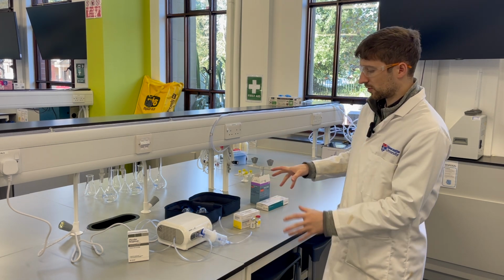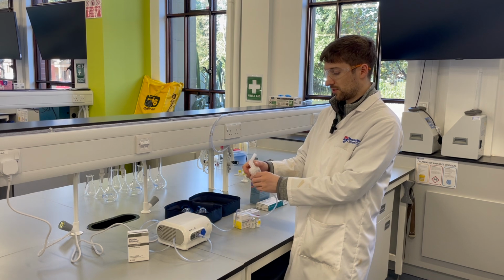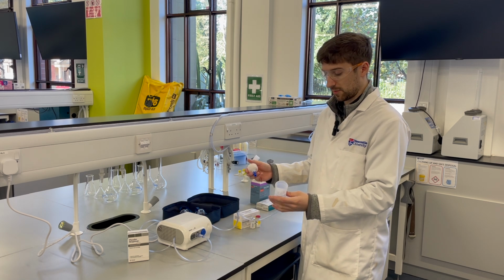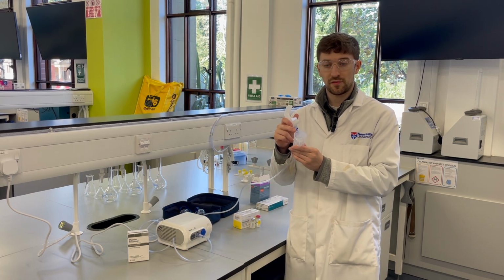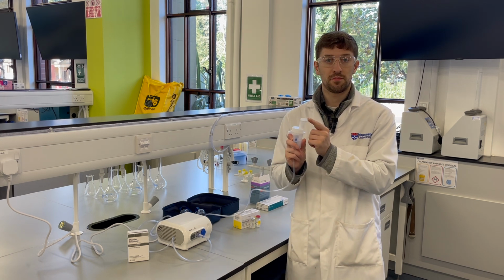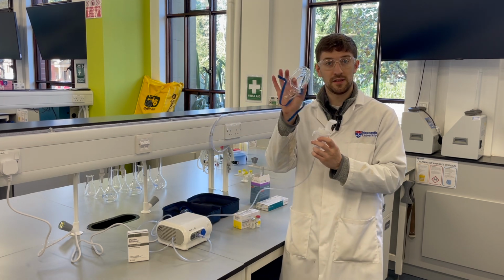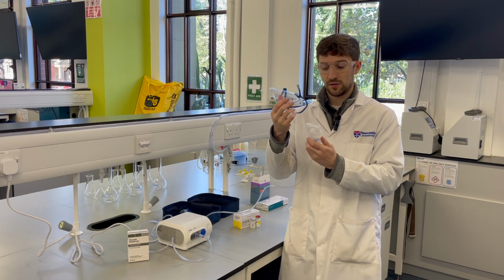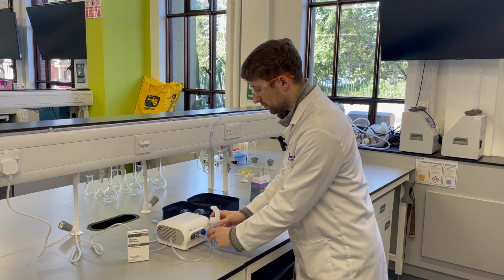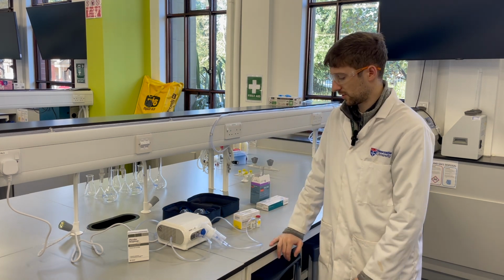In the first practical, we're going to be looking at a nebulizer. Here we have a conventional nebulizer, which has instructions here in terms of its operation, but it's pretty simple. You put the fluid into this cup, close the lid, and the patient can breathe through this nozzle. Alternatively, we can fit it with a face mask, and you can operate that too if you like, and see how that produces those small particles that I mentioned, which are delivered then into the patient's lung.